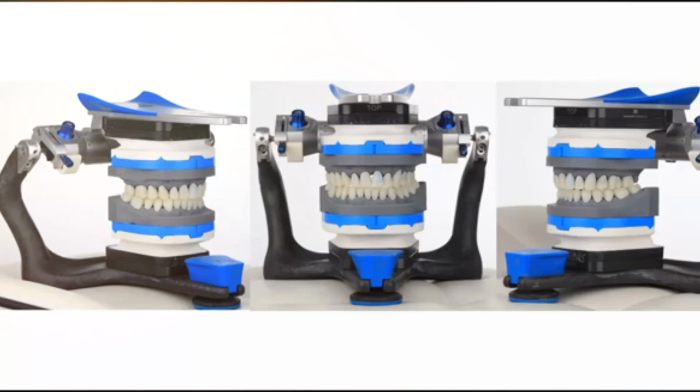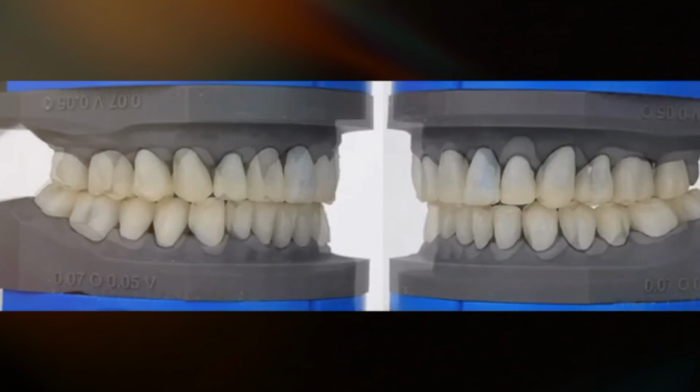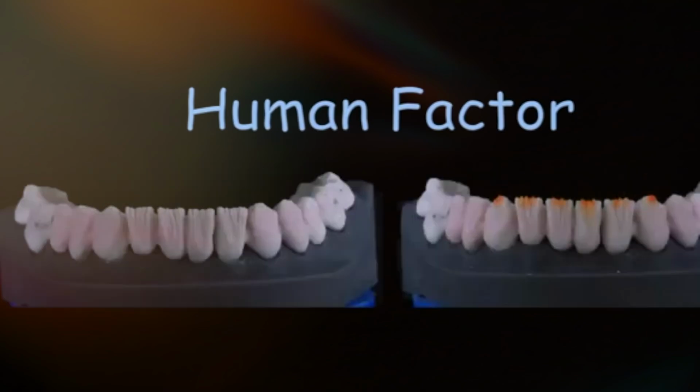We do the first foundation wash bake. And then it's time for the human factor. We apply ceramic, we do the veneering, layering, in order to get the aesthetic, translucent, color effects.